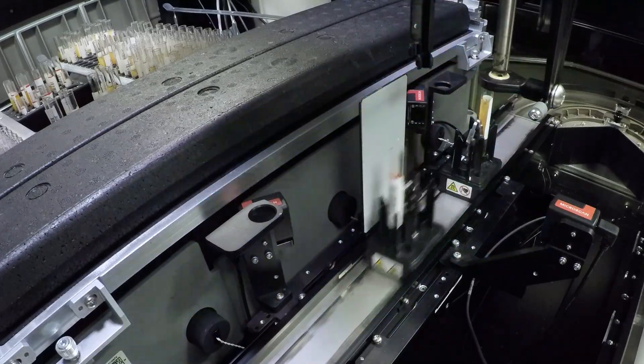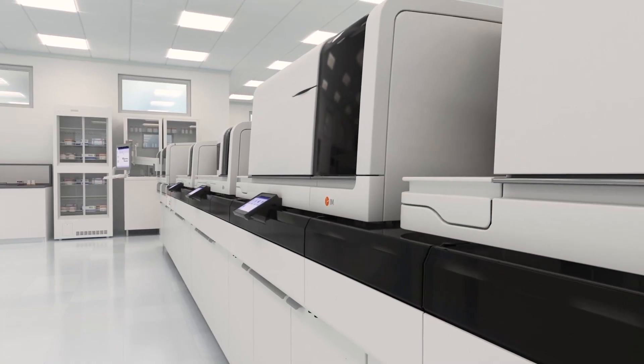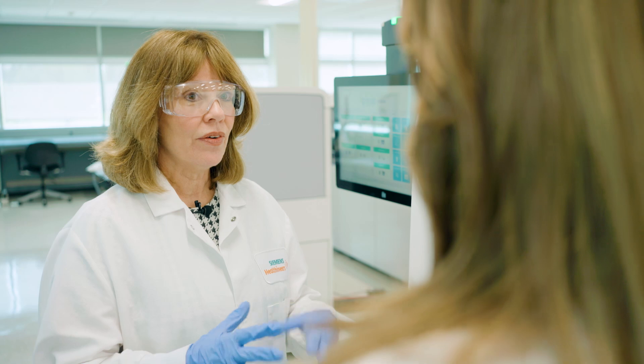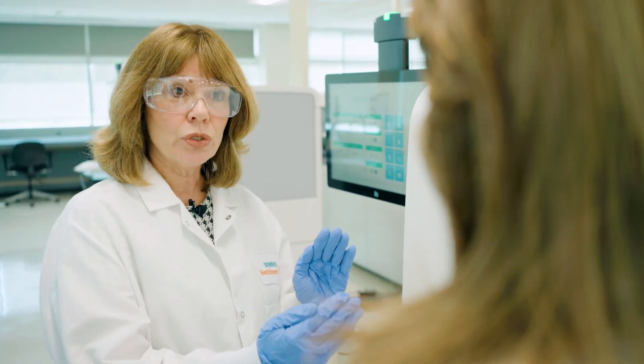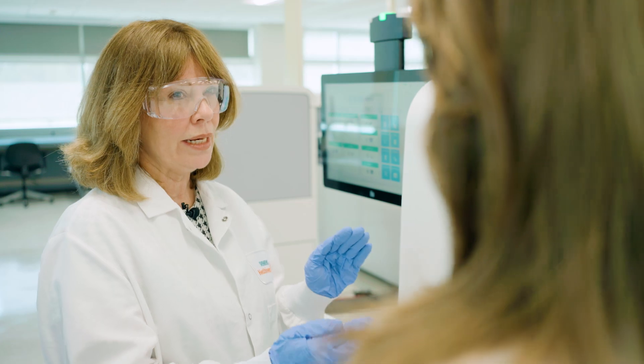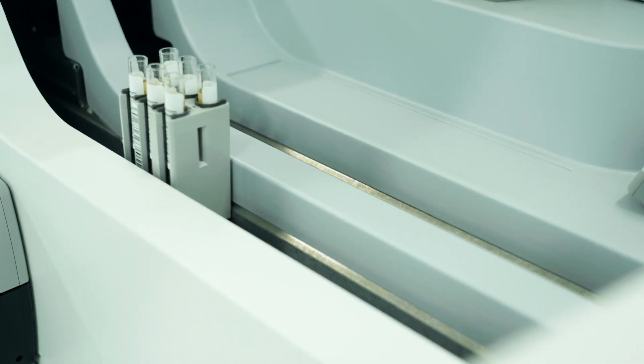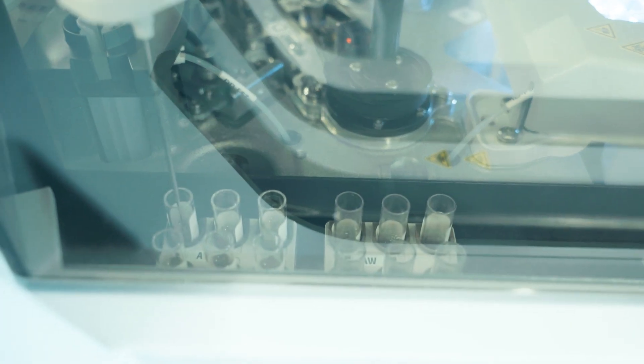So what's the benefit of the smaller footprint? Not every lab is of the same dimension or size. They have different needs. And we wanted to do two things. We wanted to accommodate those smaller labs that are more located in the rural settings, but offer the same power that the Atellica solution does.